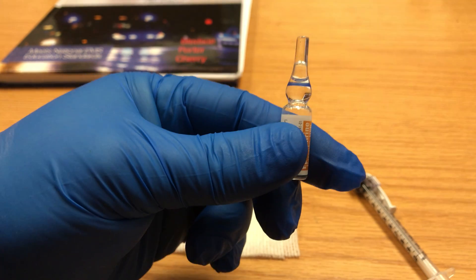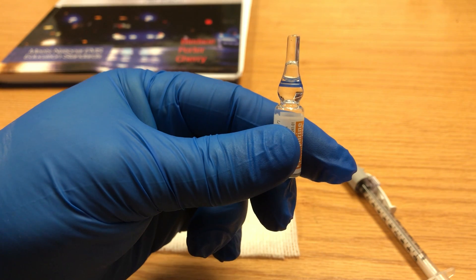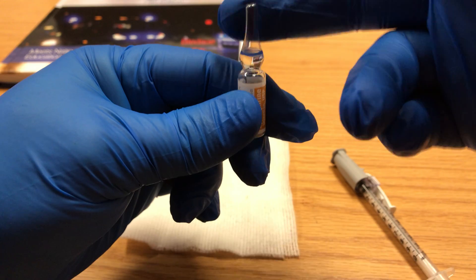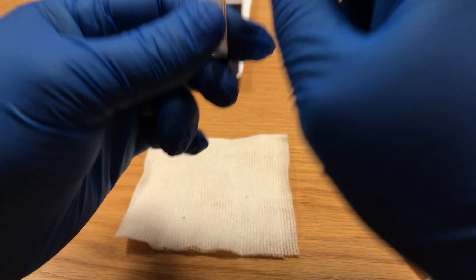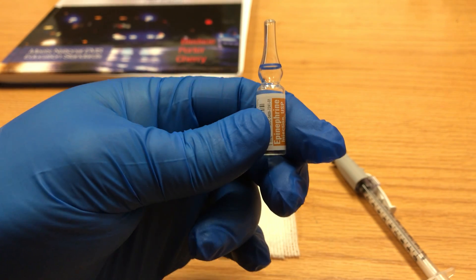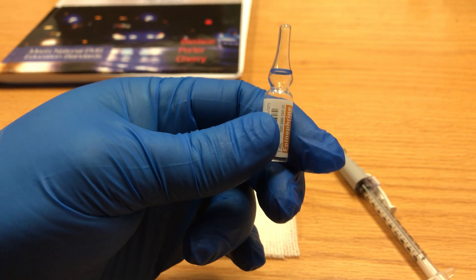First thing you want to note, there's a little bit of medicine up in the top of the ampoule, so you need to flick that, pop that, get all the medicine down. Some people will sort of spin it around, but you'll notice that all the medicine is now out of the top of the ampoule.